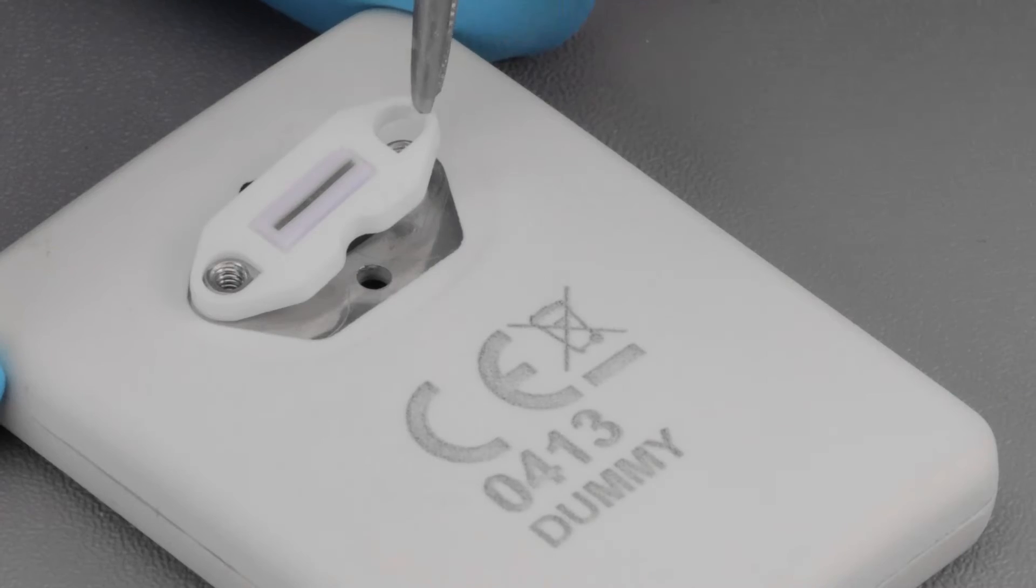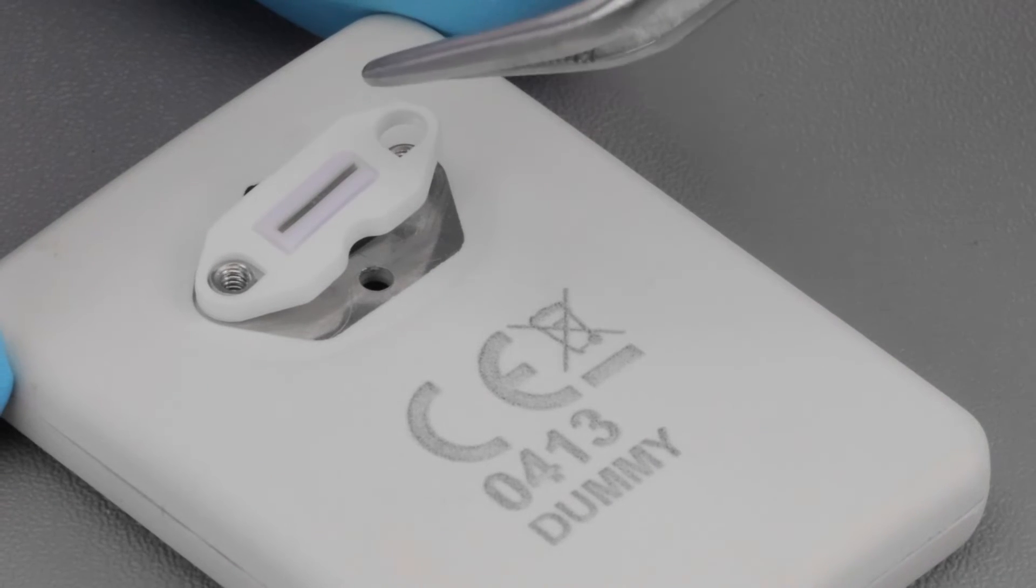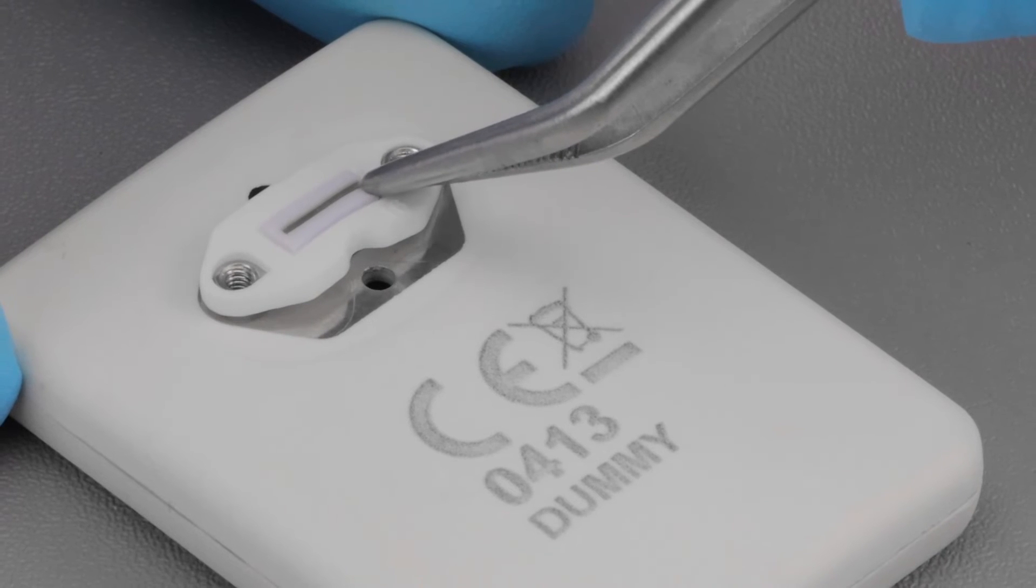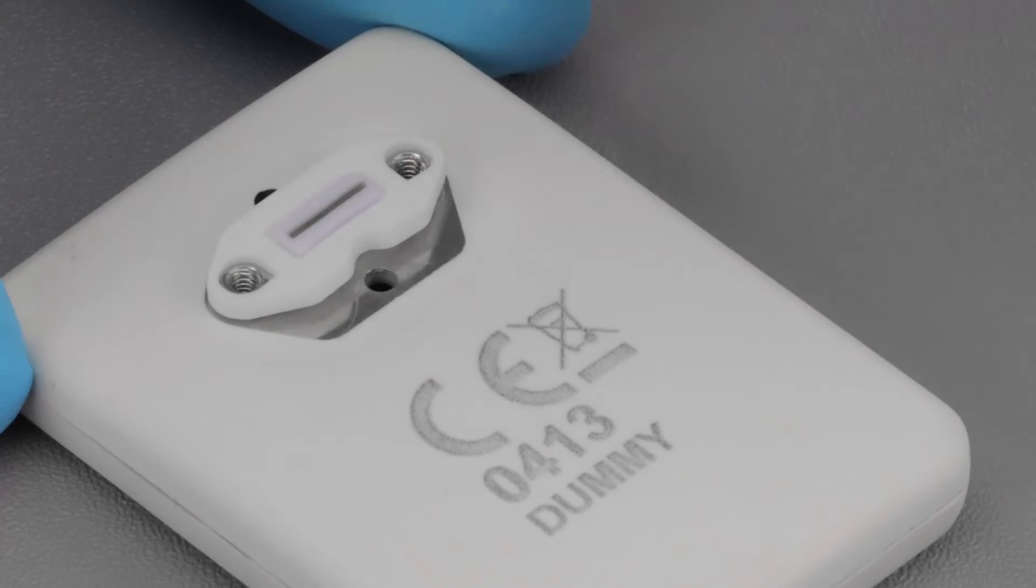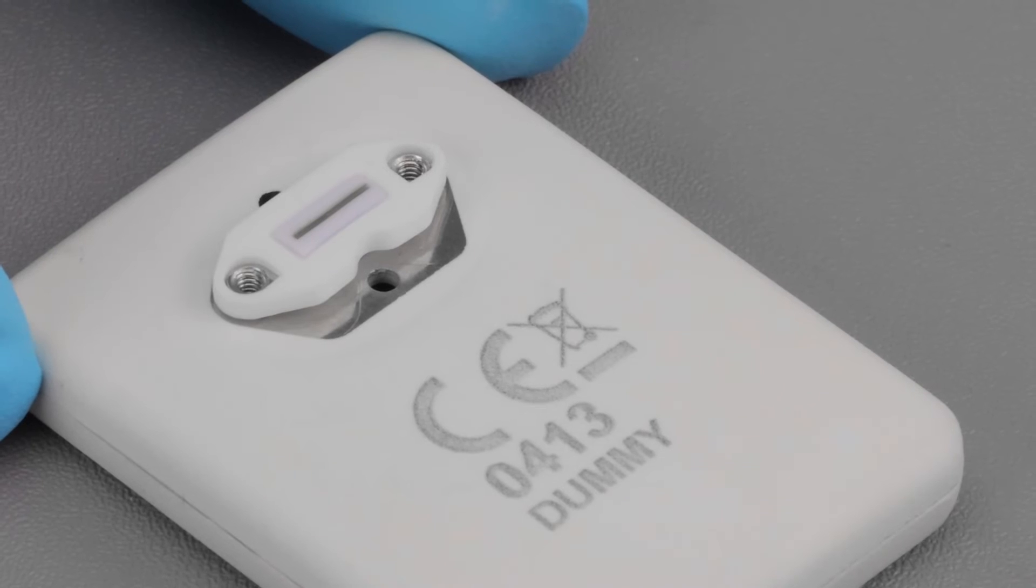When placing the white frame with strip into position, make sure that the flat surface is facing up and the notched cutout faces the longer side of the sensor. Avoid contact with the gold section in the center.